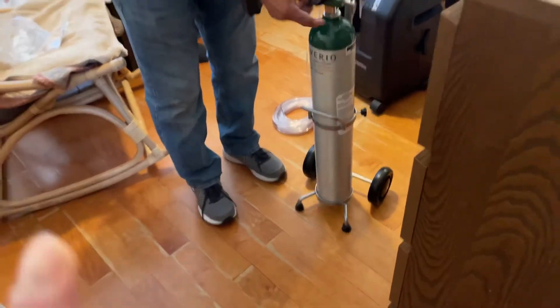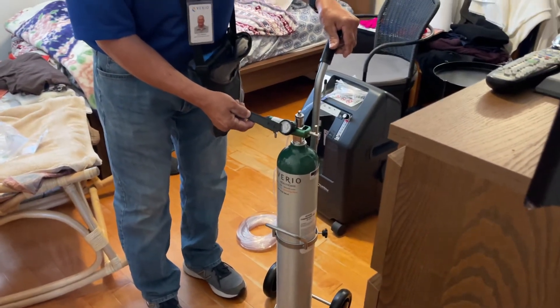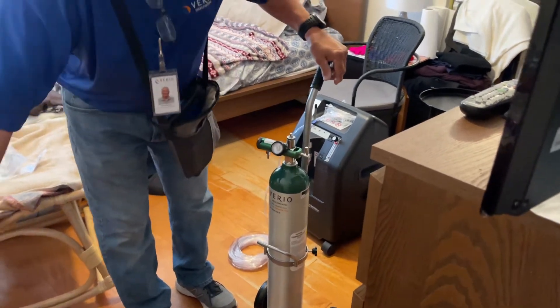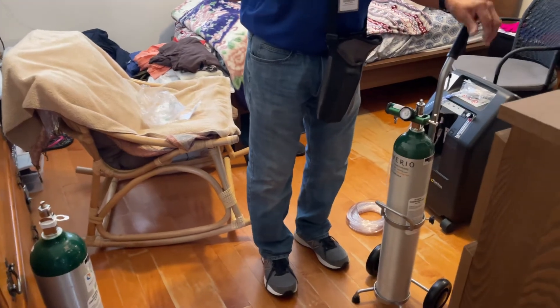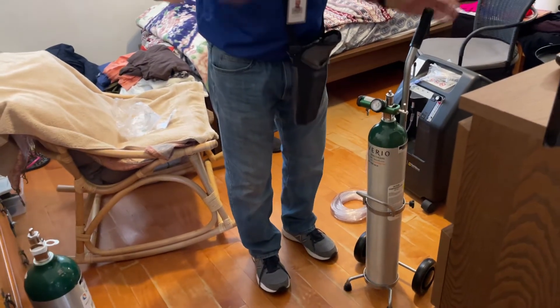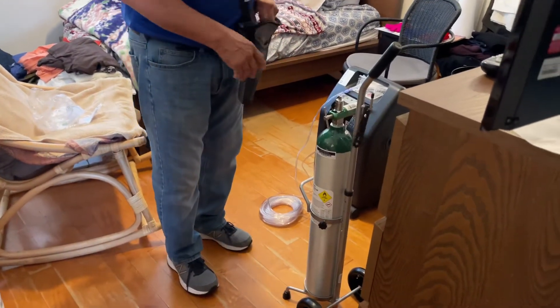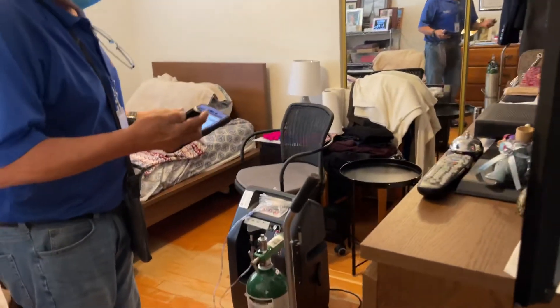When you're down to one tank, this gauge right here tells you when you're empty — that's four hours. Once you're into the red, turn the tank off, disconnect, pull the little white tag down, look for the two holes, match the two pins up, put them in, tighten — and you're ready to go.